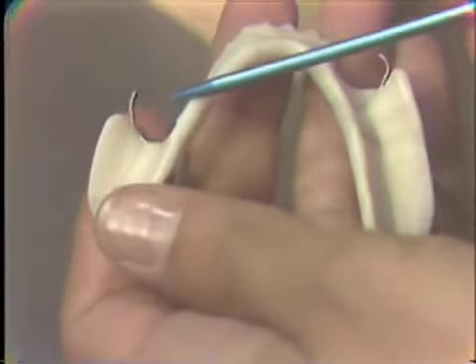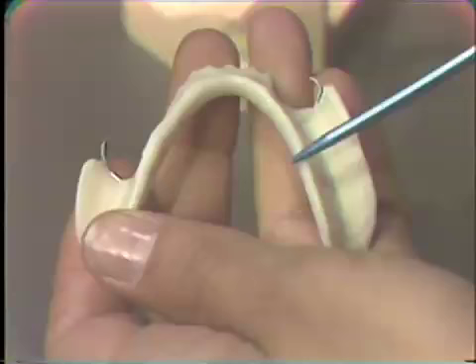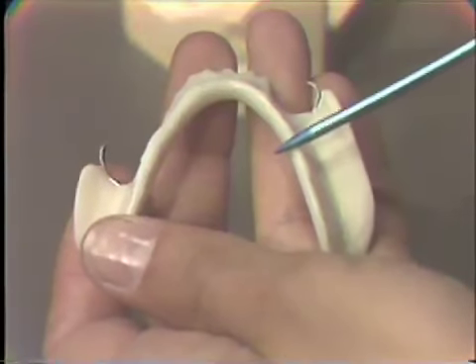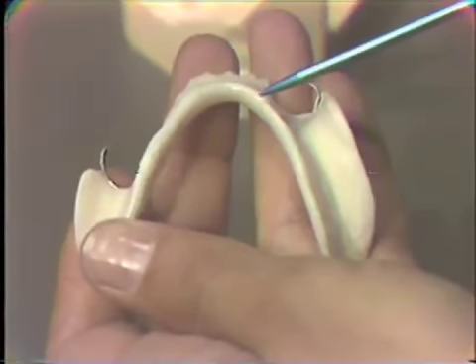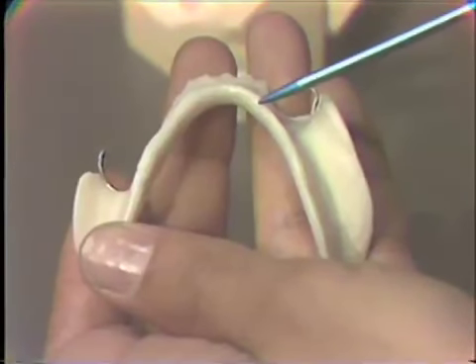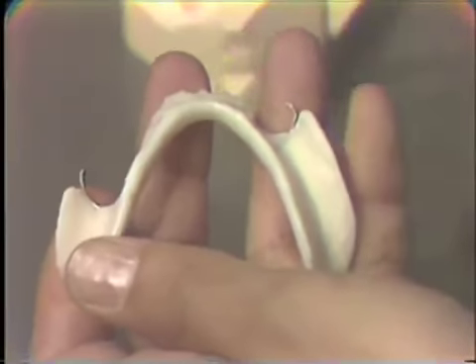If there is any portion of the record base which is causing pain to the patient, that alone may cause a deviation of the mandible, or if you're using some impression material or a material such as wax to record the bite with, they may deviate to one side or the other to favor the side that's being injured. So we want to be sure that this appliance is not causing or inflicting any pain on the patient.